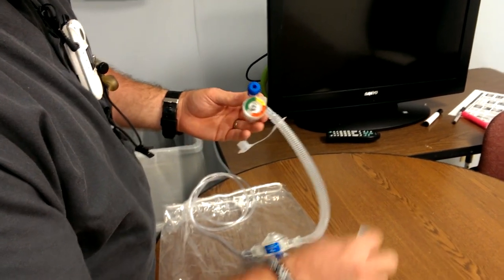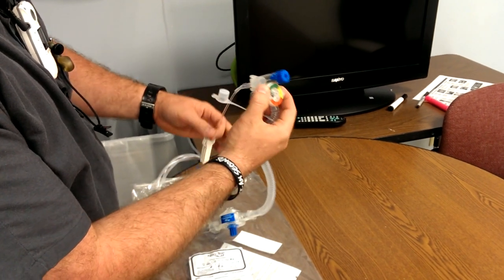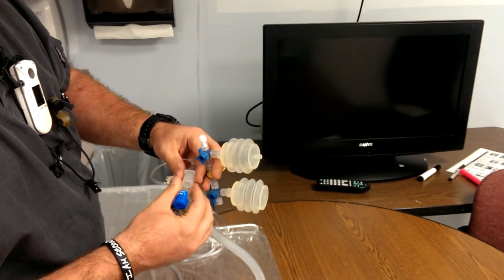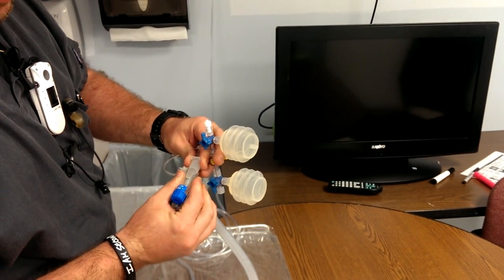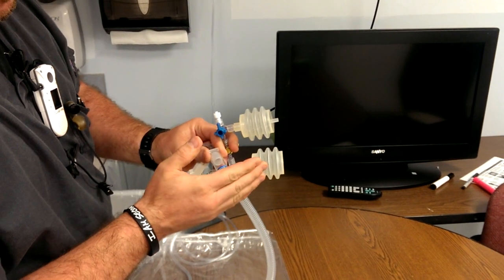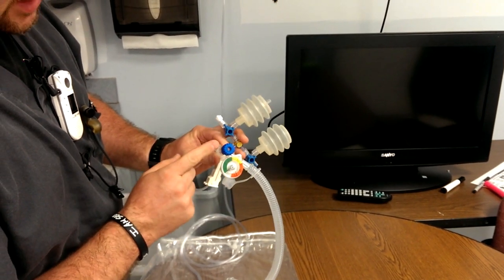Now if I was going to ventilate something, I'll show you how this works — I'll just attach it to this ET tube. When I seal this on, this is giving CPAP. Watch the lungs closely; when I attach it, they will expand — there's your CPAP. I can feel air coming out of this hole right here. Whenever I occlude this hole, this is giving the breath — it's like squeezing the bag.